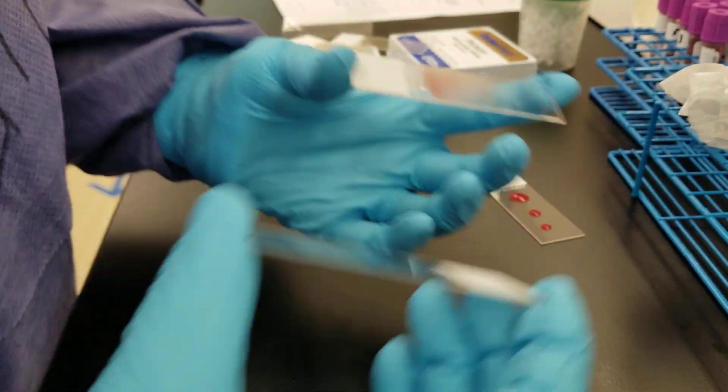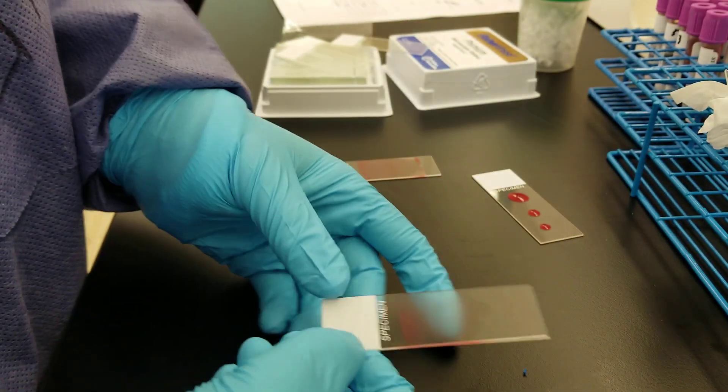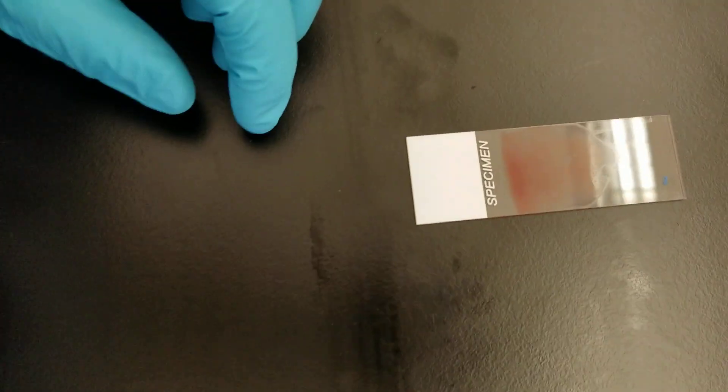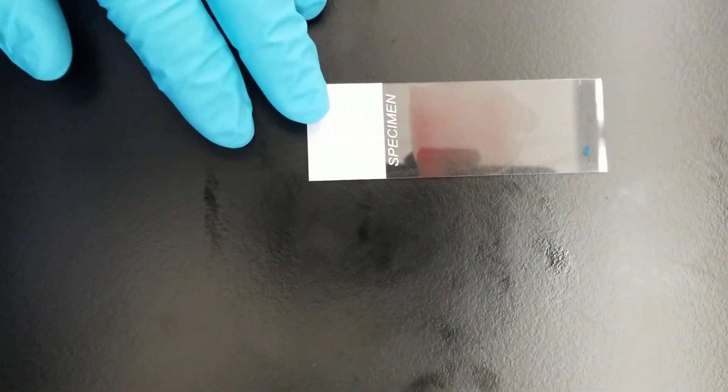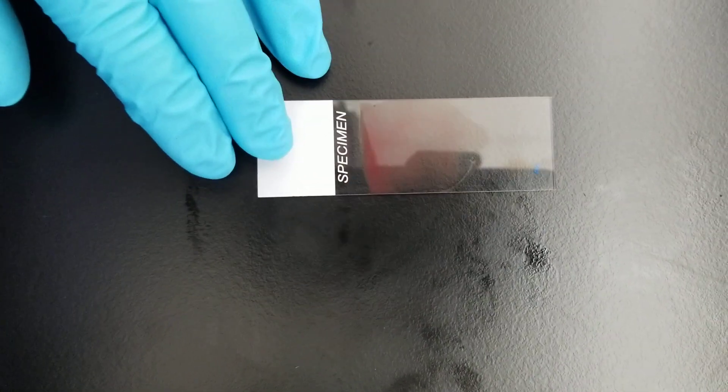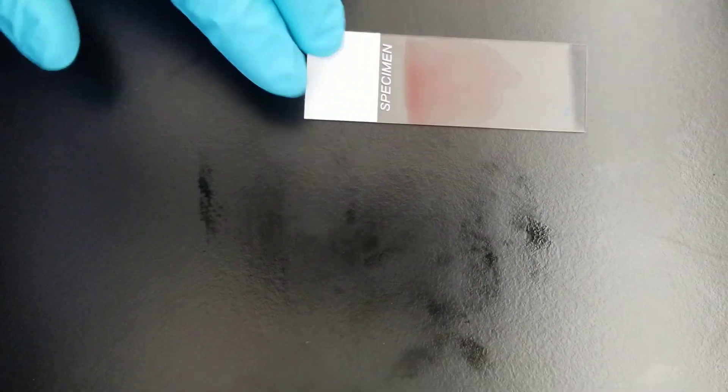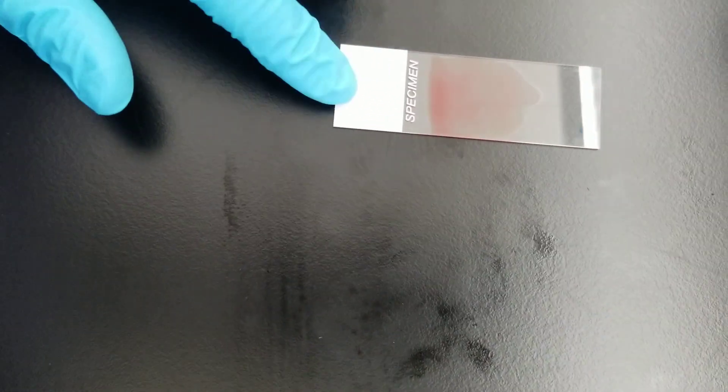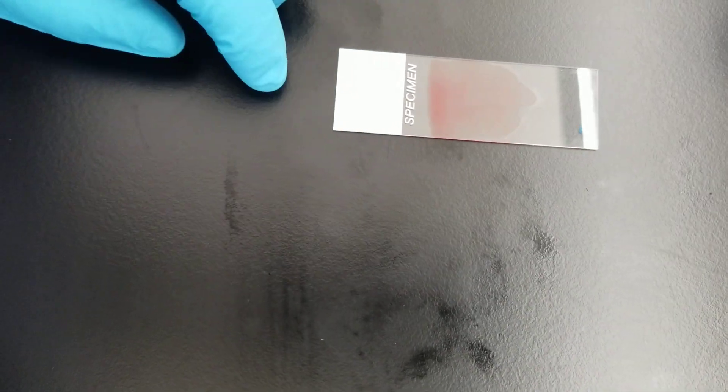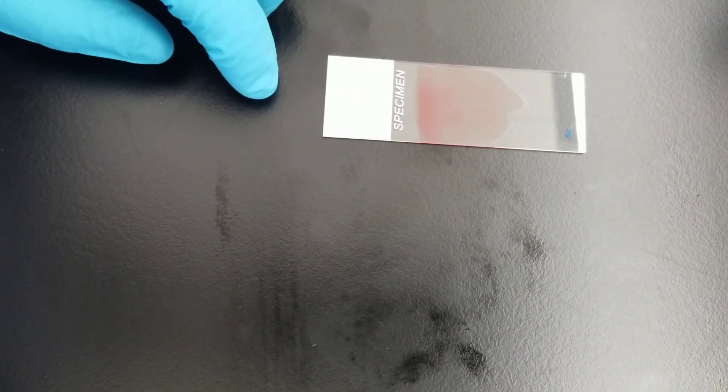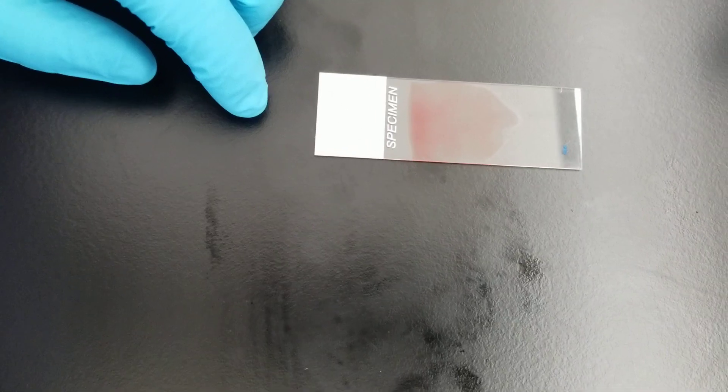Okay, so you end up having that beautiful feathered edge. It's not perfect, but it's much better. Okay, so then we would label this and then let it air dry and then come back and do the staining. That'll be another video.